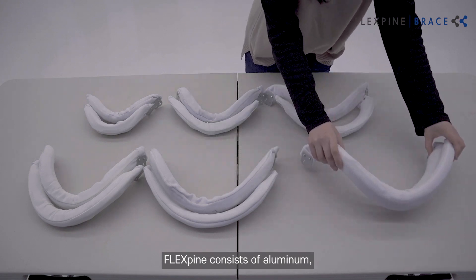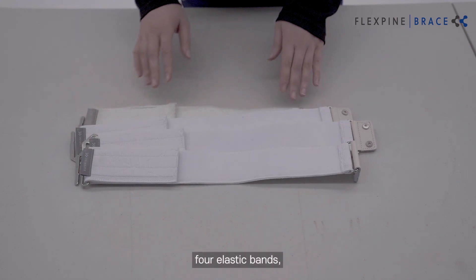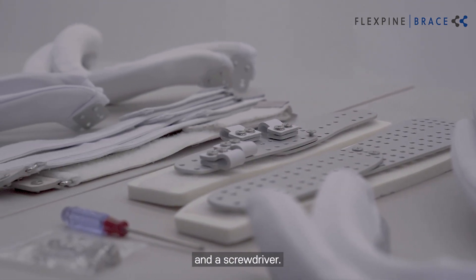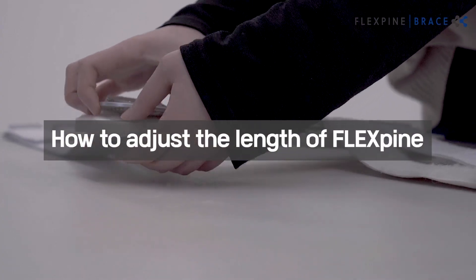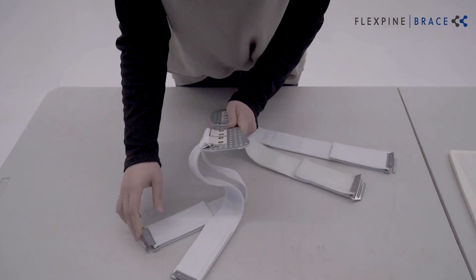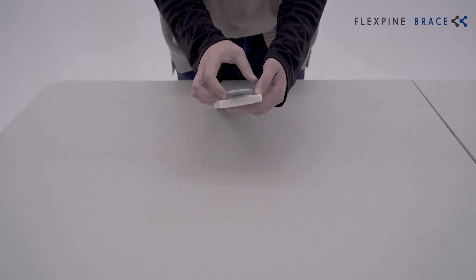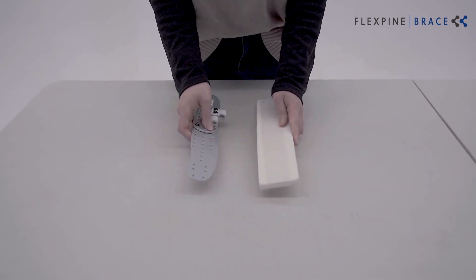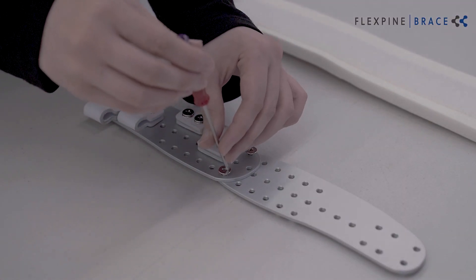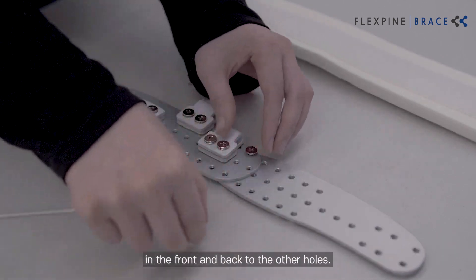Flex Spine consists of aluminum frames of various sizes, four elastic bands, and a screwdriver. Users can adjust the length of the frame by moving the screws in the front and back to other holes.